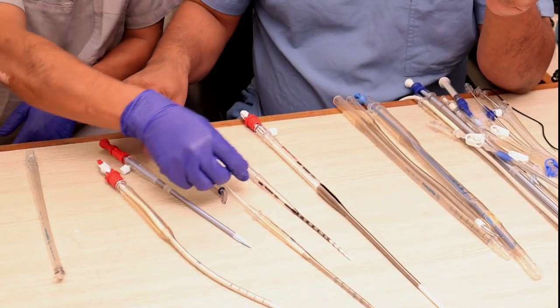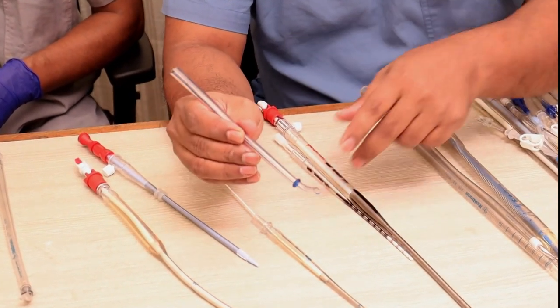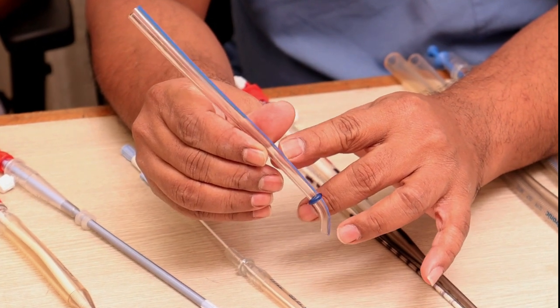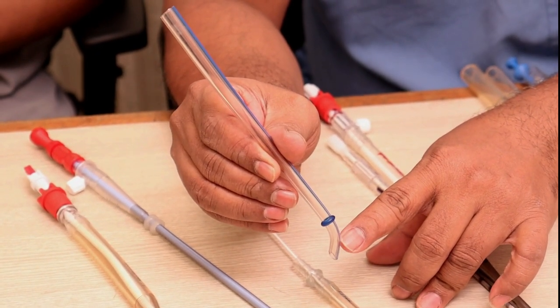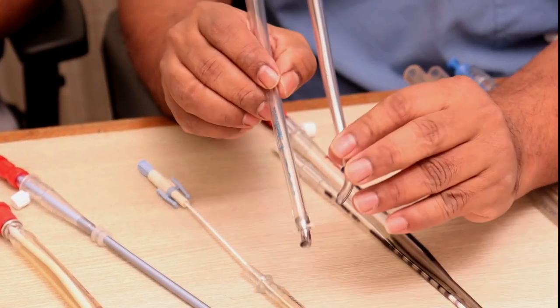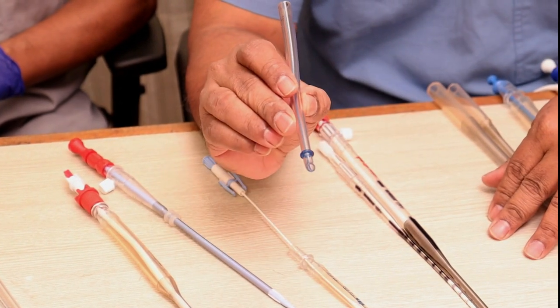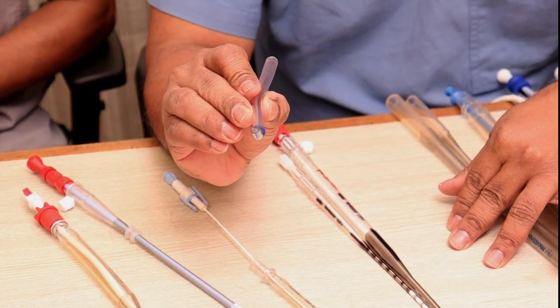Another cannula type is not wire-reinforced and has a beveled plastic tip (not steel-tipped) with a stopper. Here, the line should be directed towards the foot end of the patient — unlike the first cannula where it faces the head end. Always check the line direction before using any cannula. Wire reinforcement is important to avoid kinking. The beveled edge can again cause jet effect, selective cannulation of neck vessels, or high gradients if hitting the aortic wall.